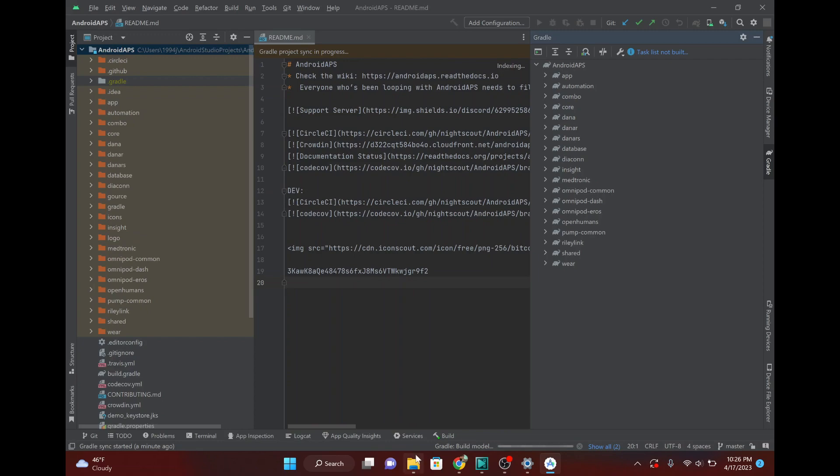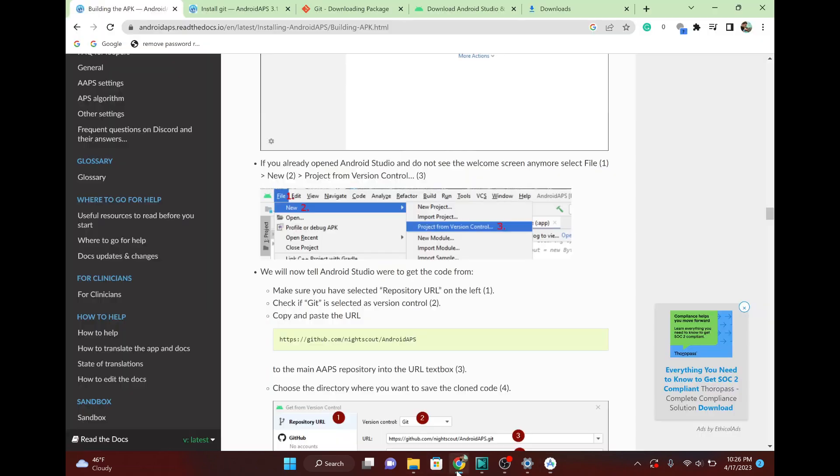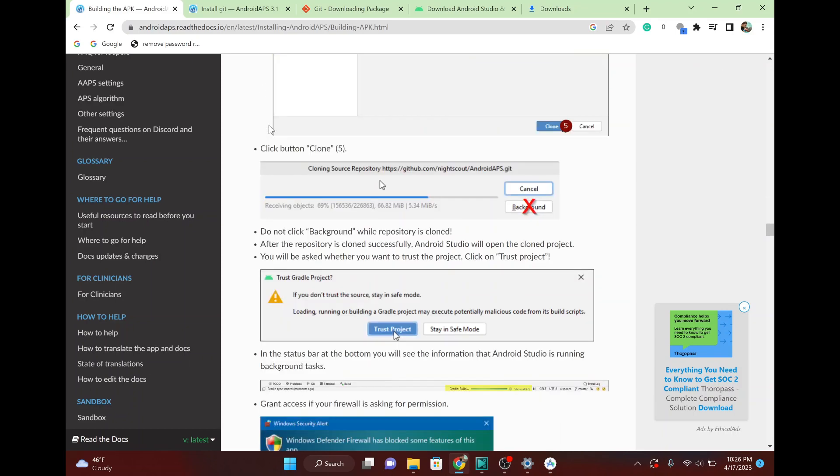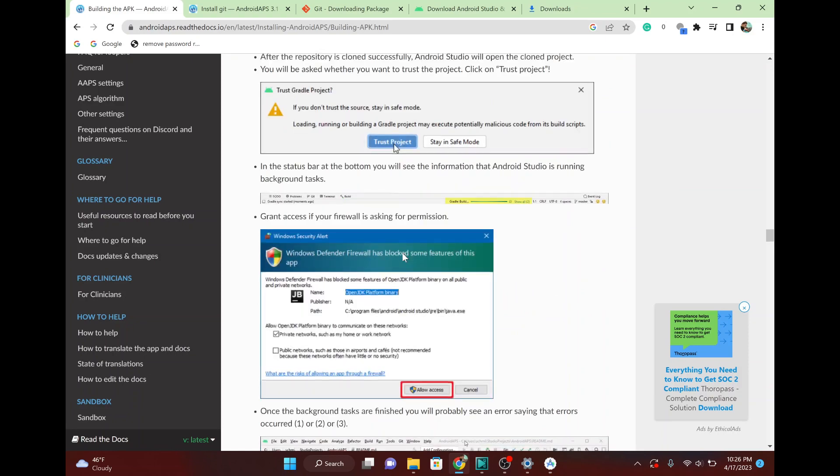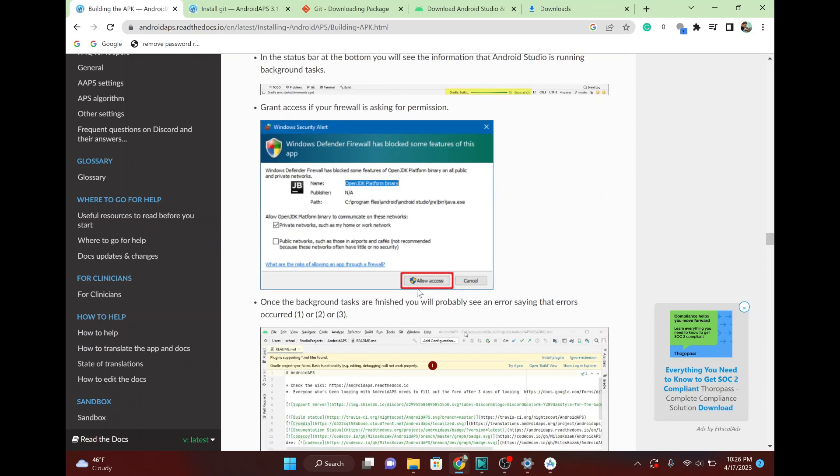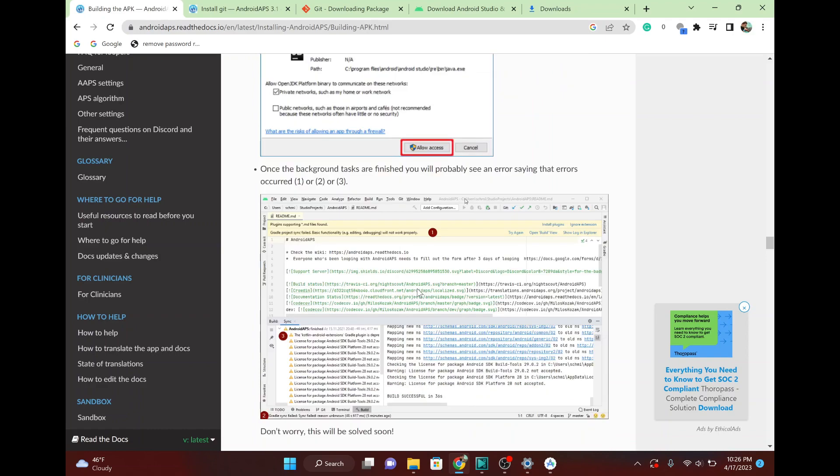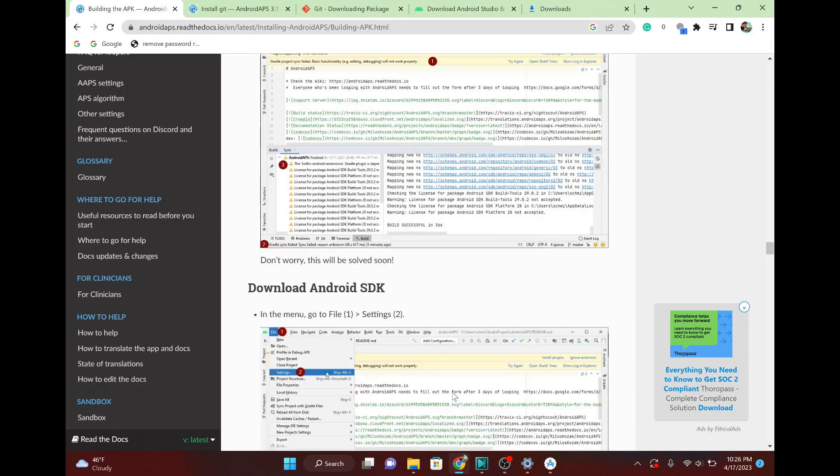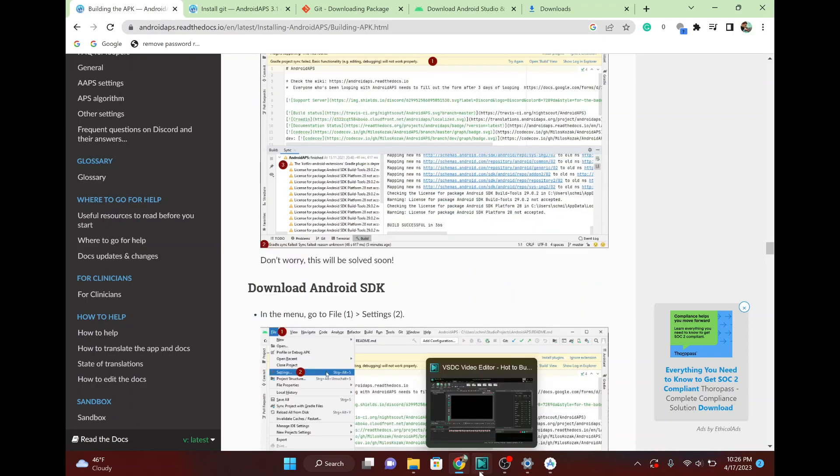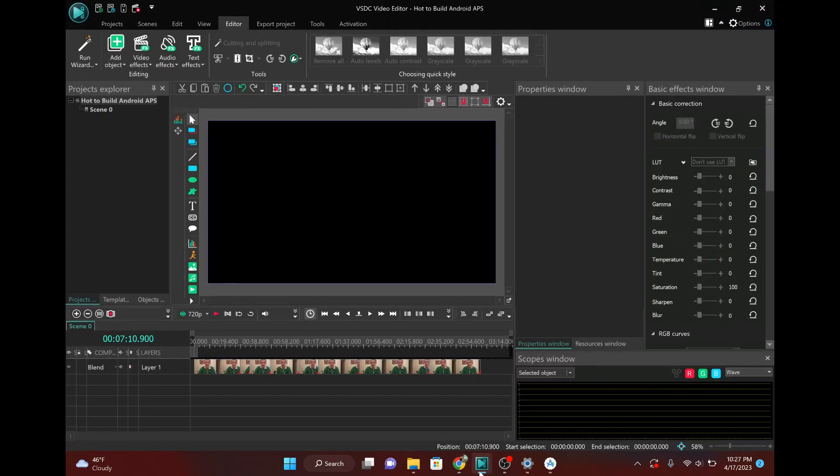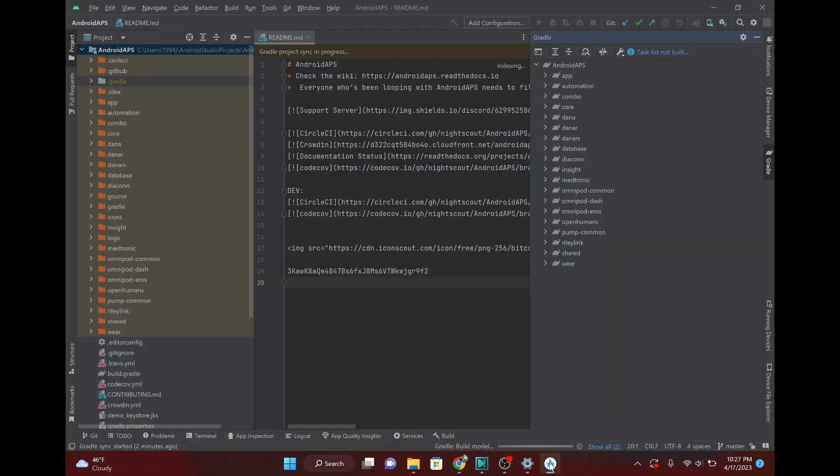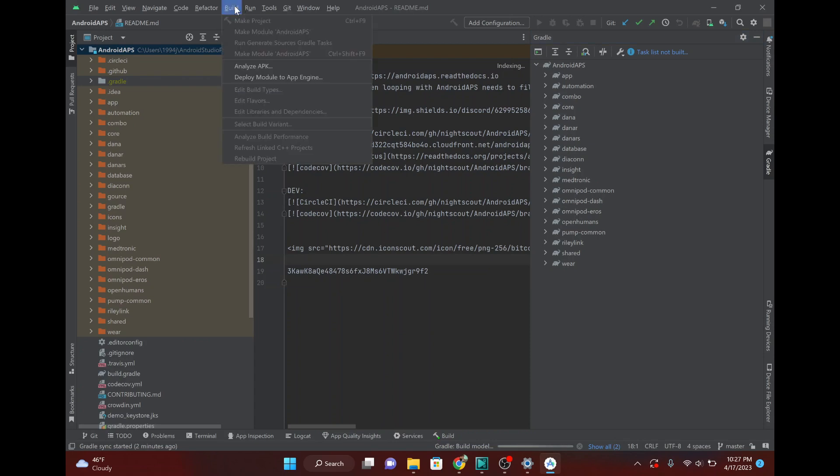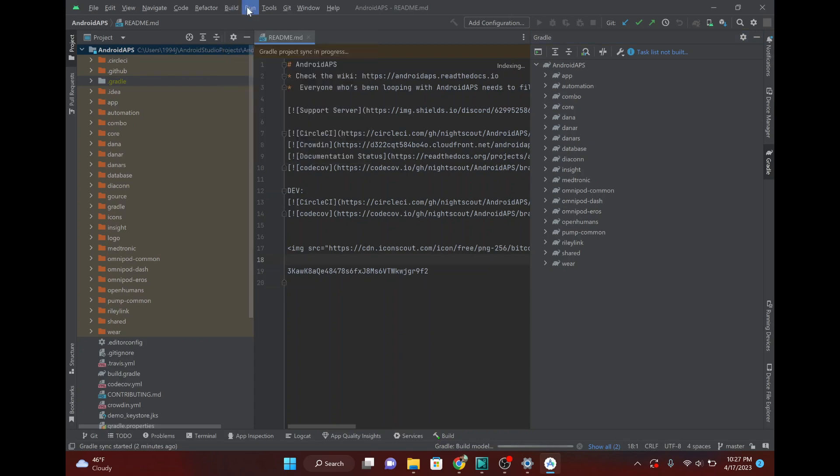Okay. So now that that clone is done, just an FYI, you may see a little pop-up that says whether you want to trust this project or not. I didn't, but if you do hit yes, trust project. You also might have Windows Firewall to want some of the features blocked. It's okay. Just allow access to it. Yeah, now that we're in, sorry, Android Studio. We got all the code and everything downloaded. We're good to go. What we want to do is we want to, sorry. First thing that we want to do here is we want to go File, Settings.